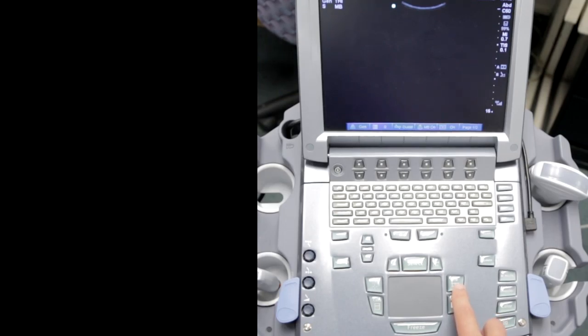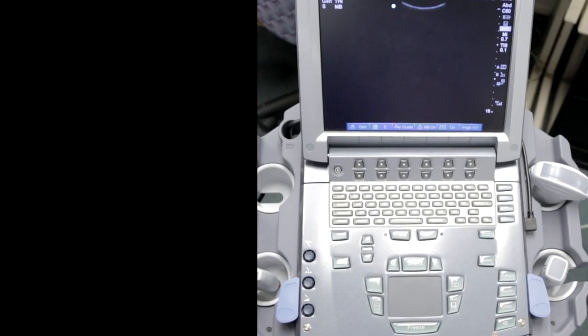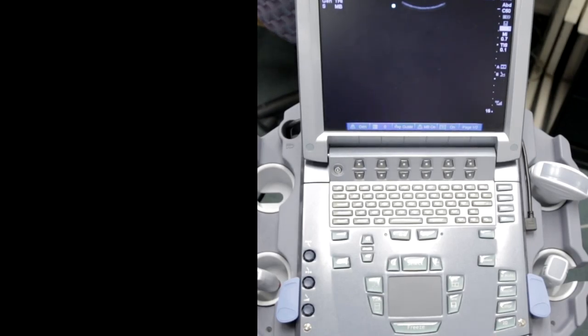Clip will save a video. Right now we've set it to about four seconds. If you push clip, you just wait and you'll hear a beep. When you hear that beep, the clip is done saving.